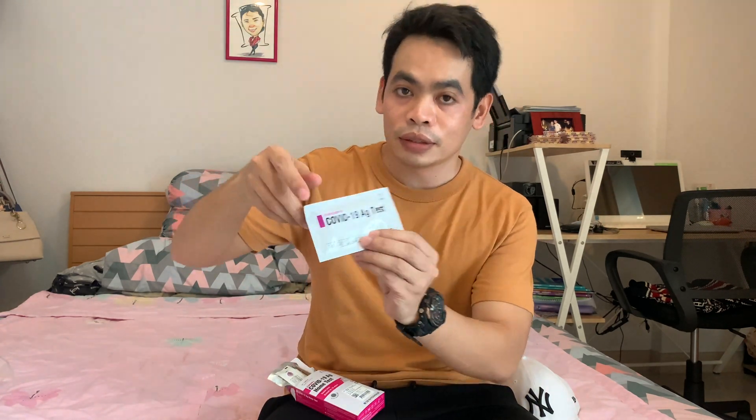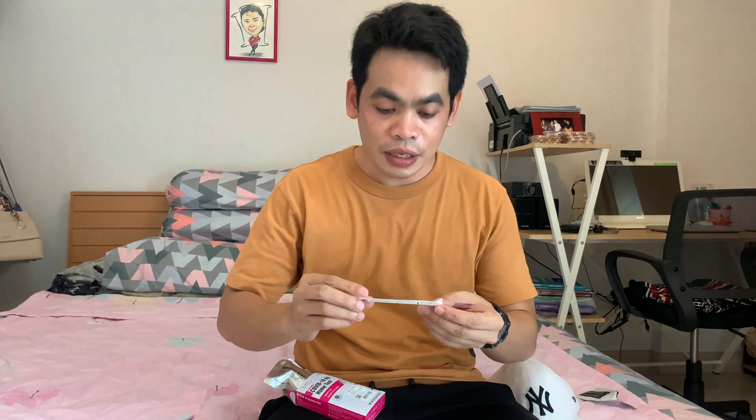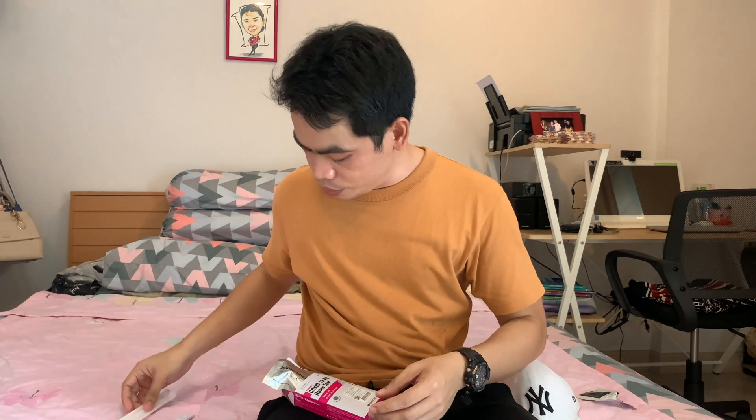Okay, so let's check out what's in the kit. This one looks like a pregnancy test for women. There's silica gel — that means do not eat. And there's this cotton bud, which is used to put in your nose. And this one is called the solution tube with a nozzle cap.